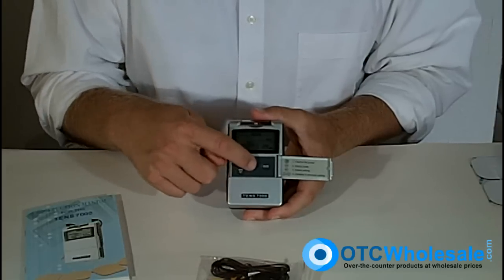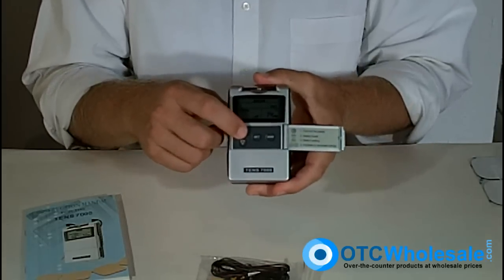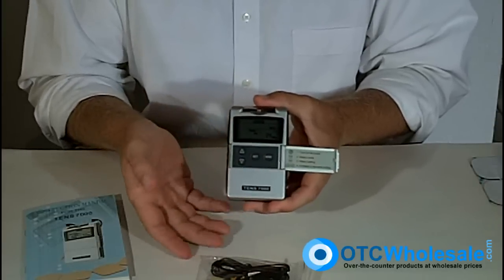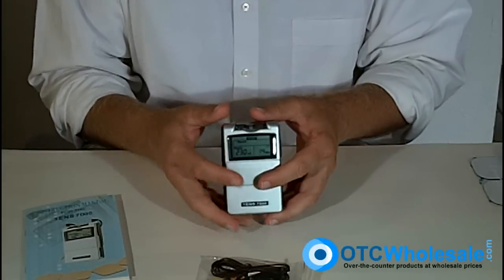In the center here there's a SET button. As I press the SET button, I can see the particular parameter that I'm going to be changing — it's flashing. I just use the up and down buttons to change the setting for that particular parameter, then press SET and move on to the next parameter. When I've got everything set the way I want, I press the mode button and it's ready to rock and roll.